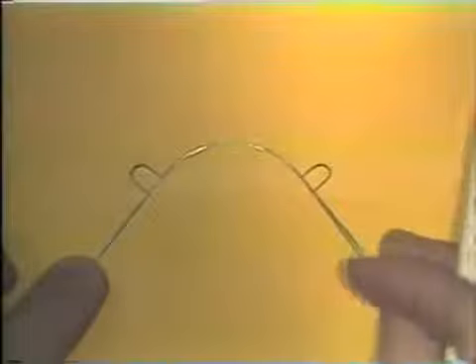The next step after this curved portion of the pattern is flat and fits directly over the lines is to mark the spot where the first right angle bend for the loop will be. The same procedure is used as before. The beaks of the plier are placed just to the side of the mark in the wire.